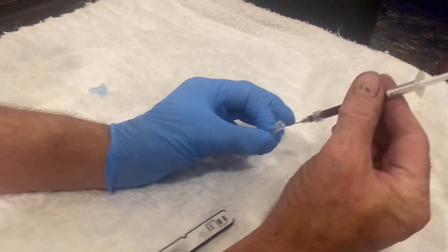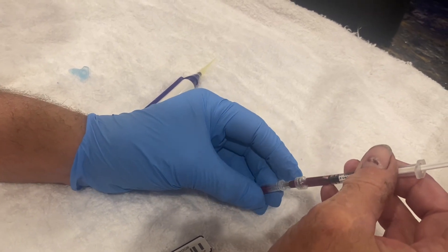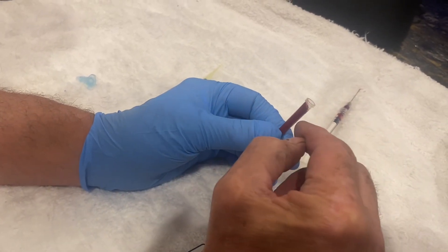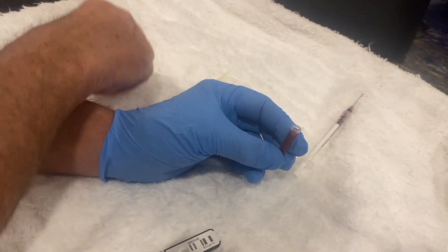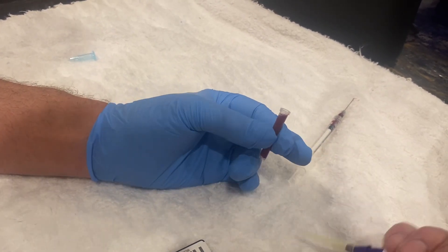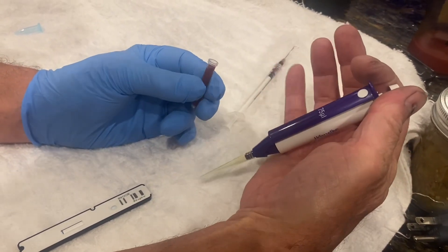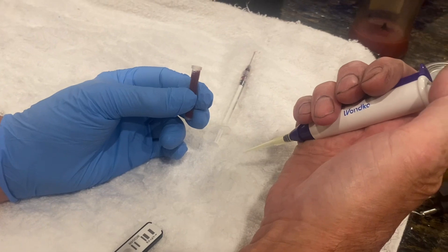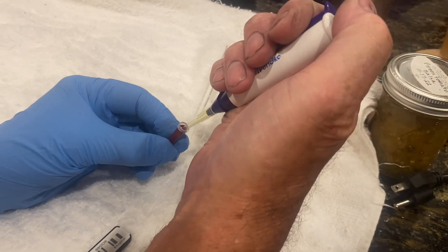The guard cap on the syringe is a useful place to put the blood. You get about half a CC in a cap — that's more than enough to do this test. You can spin it down in a centrifuge if you're using that method. Some caps have a hole in the bottom; if they do, that won't work because it'll all leak out. Always blow through it before you use it to make sure you can't get air going through. Here's our auto-pipette — there are two positions: halfway down and all the way down. Everything is done on the halfway position.